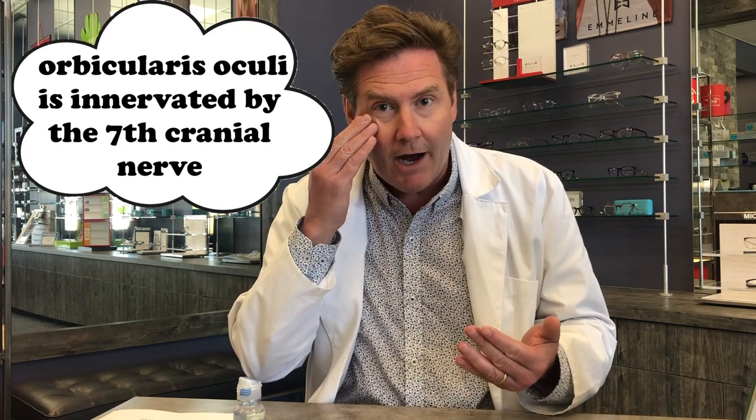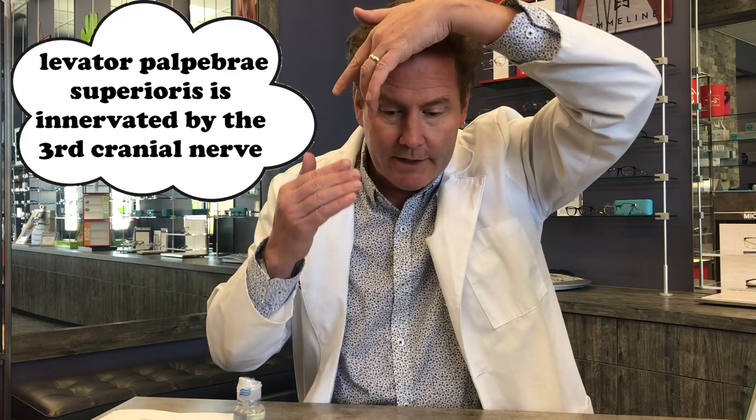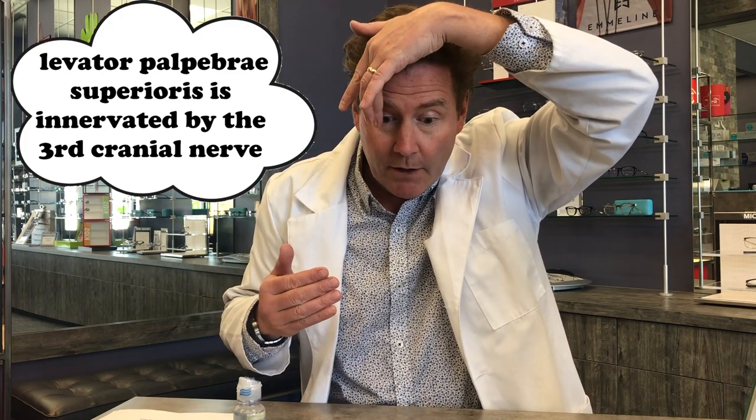First step is holding your upper lid. This lid is very, very strong. If we're going to put it in the right eye, you're going to reach over with your left hand, look down, use your middle finger, grasp some of your lashes and the lid margin, and pinch them up to your brow. If you get a good grip on this you're going to have a hard time blinking, so you want to use a lot of pressure up onto the lid.